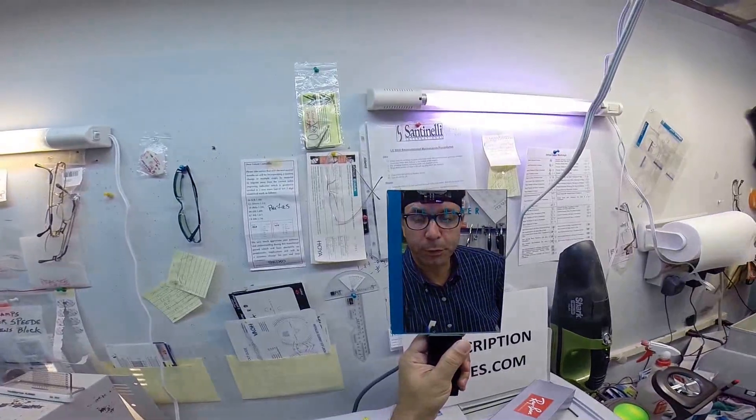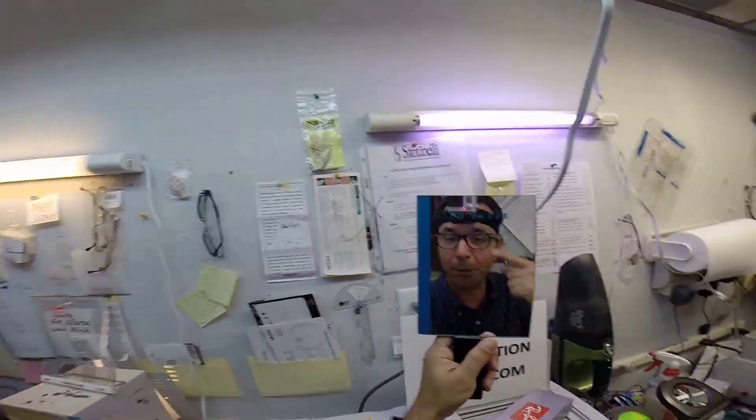Hey Manny, Matthew here with FreePrescriptionLenses.com. I hope you're having a great Father's Day trip out to LA. I'm going to show you how I cut prescription lenses. By the way, my new GoPro camera, the GoPro Hero 3. Lighter, quicker, stronger, faster. Let's see what it does.